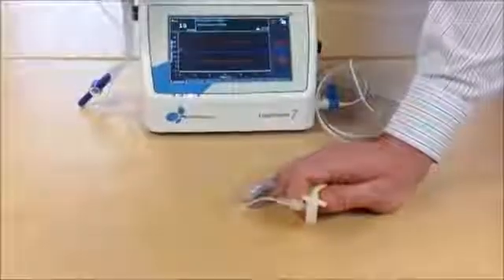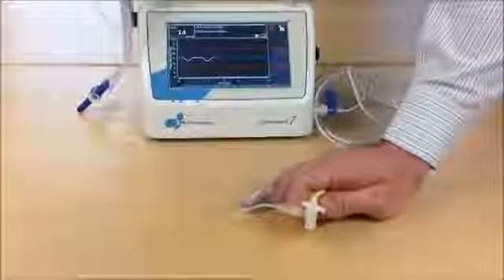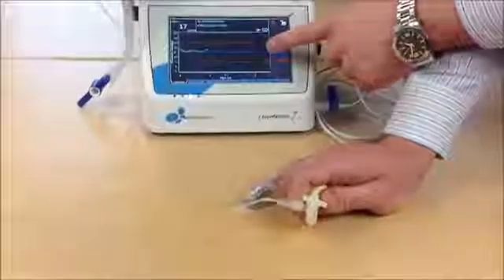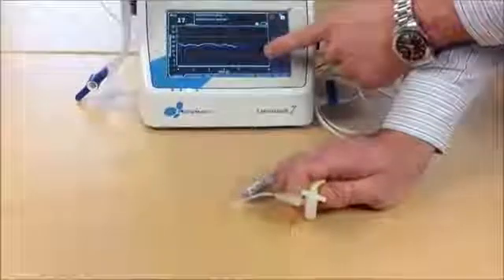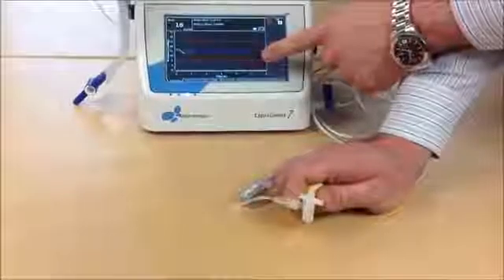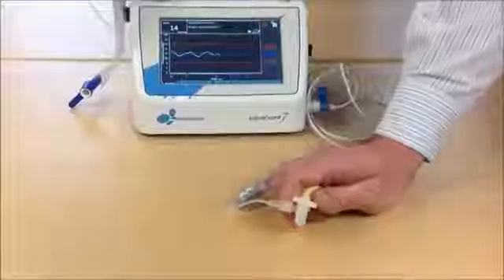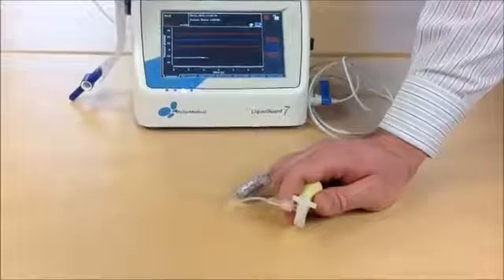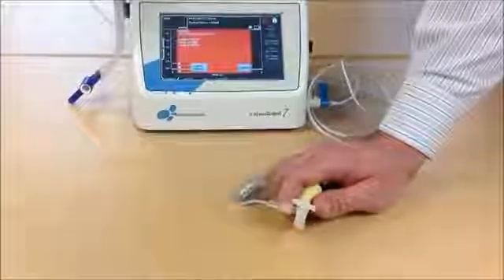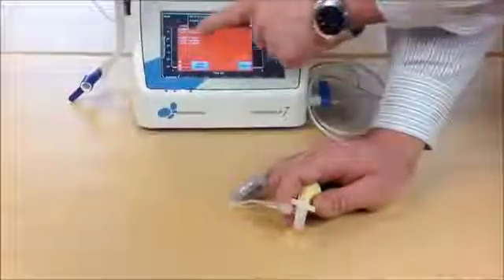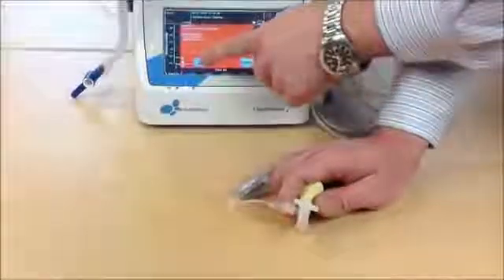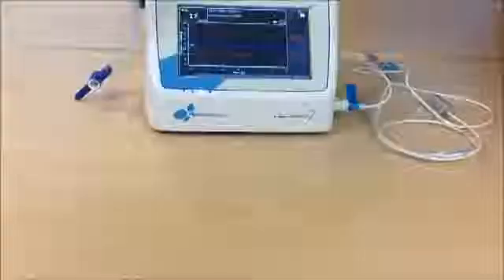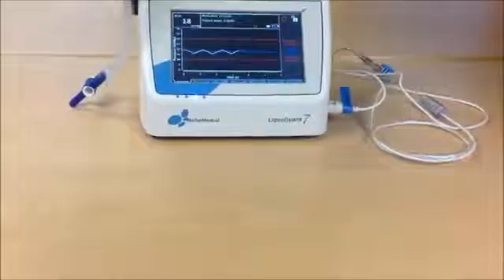The next possible alarm situation is a low pressure alarm. We have a good pressure curve now. When I now drop the pressure below the red line, we will have a low pressure alarm situation. Pressure is too low.